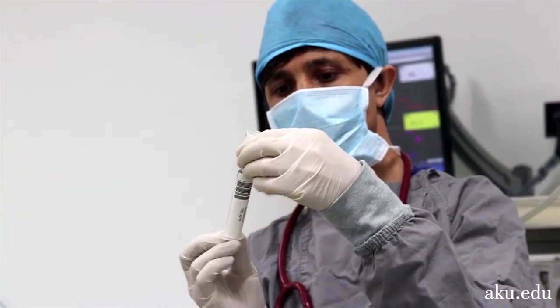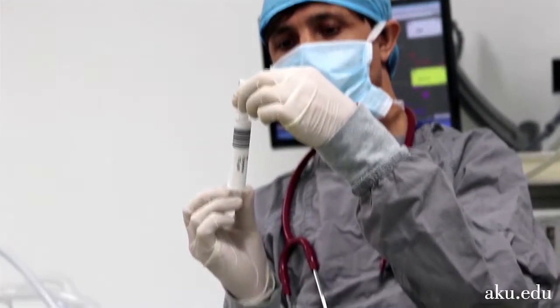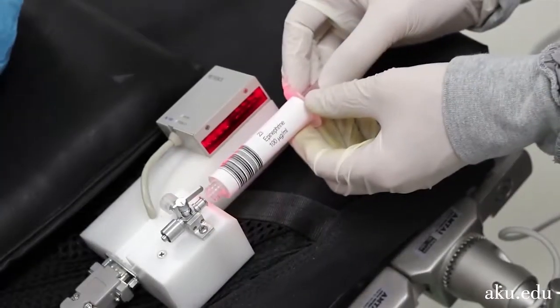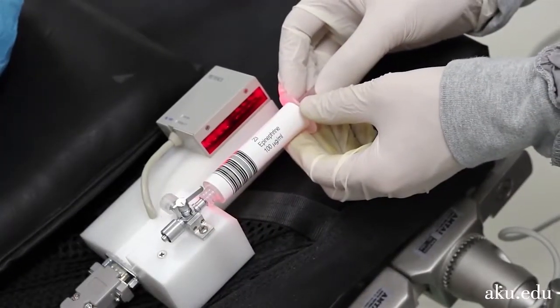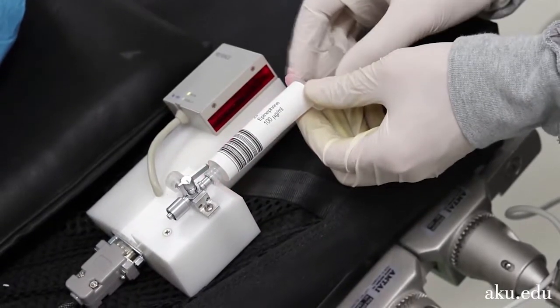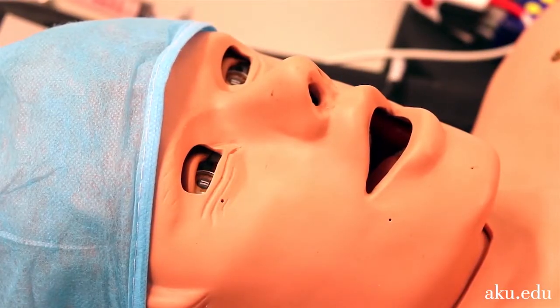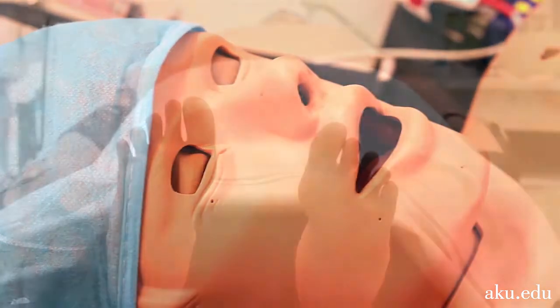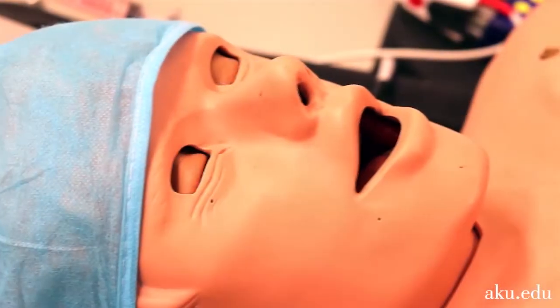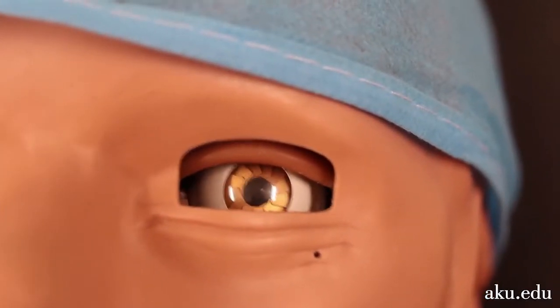The HPS uses advanced barcode technology to recognize drug intervention and produce appropriate accelerated physiological responses to various drugs. The HPS can portray realistic neurological responses in times of patient distress, such as convulsions, and eye responses such as blinking and pupillary dilation.